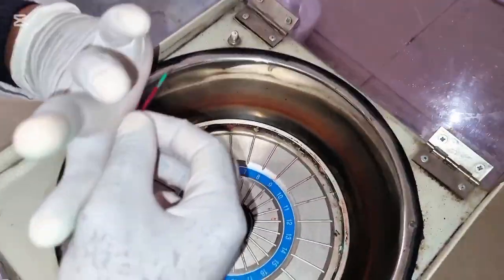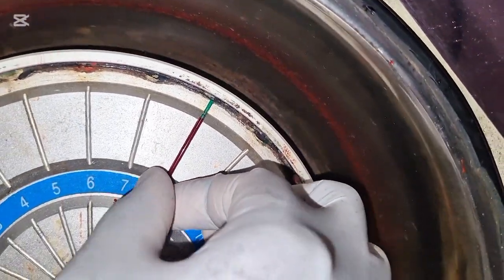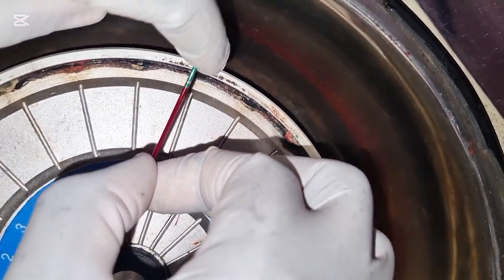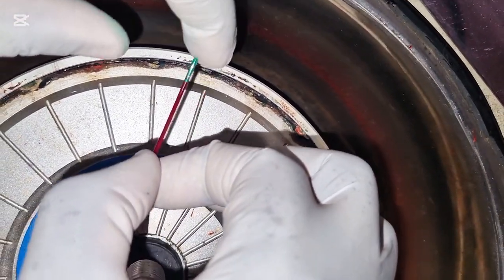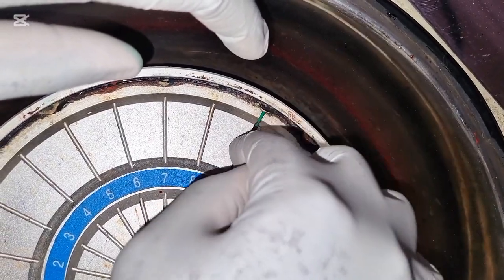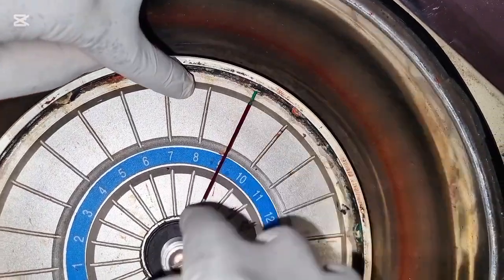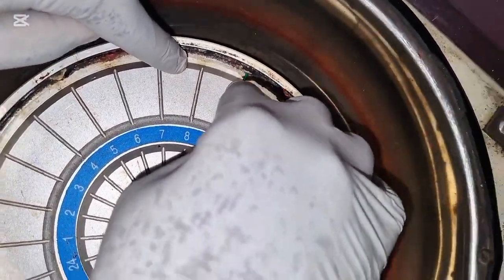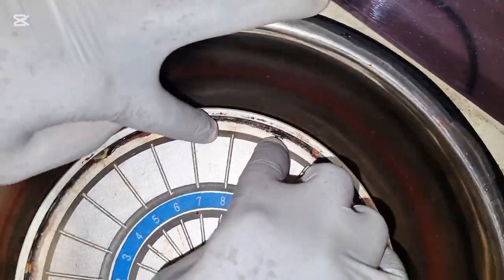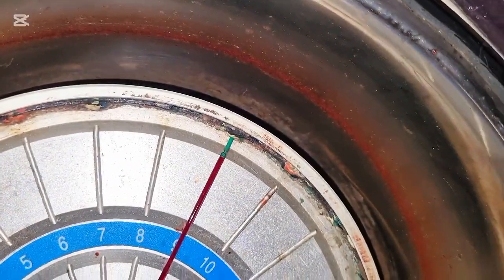and then you place the filled capillary tube with the side containing the plasticine at the end. Should be at this end, not towards the center. The edge containing the plasticine should be at the edge, away from the center. So it should be at this end to avoid spillage.